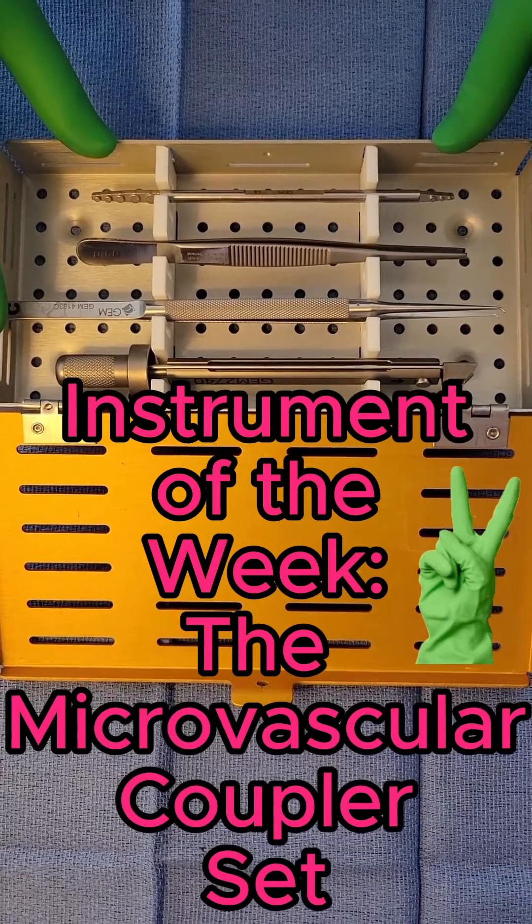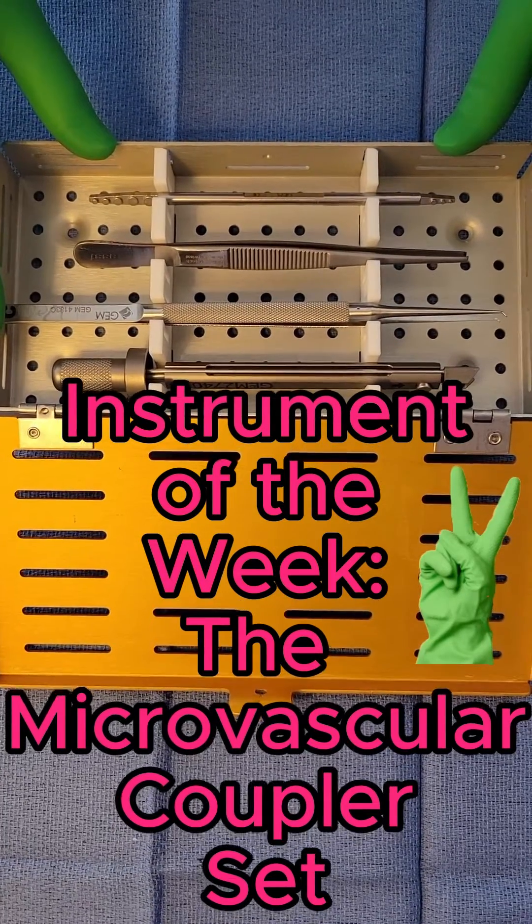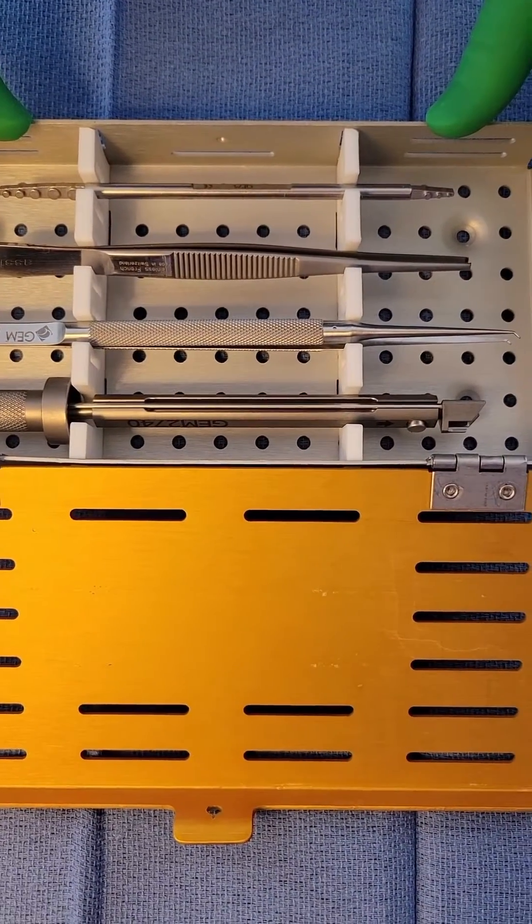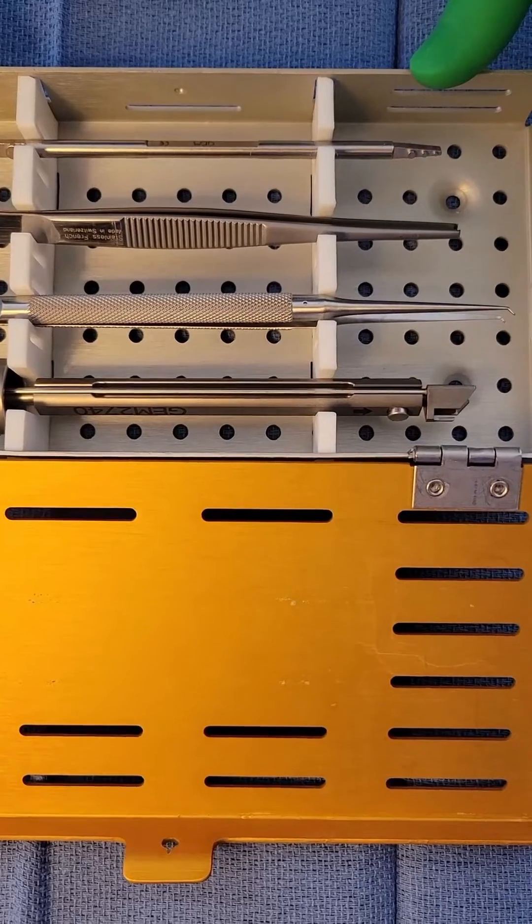Hi everyone, welcome to another episode of instrument of the week. This is on the microvascular coupler set. Please see our video on free flaps to see what surgeries we use this for specifically.